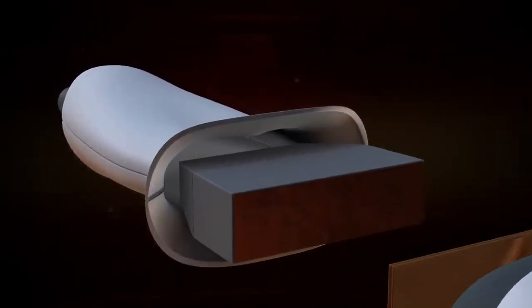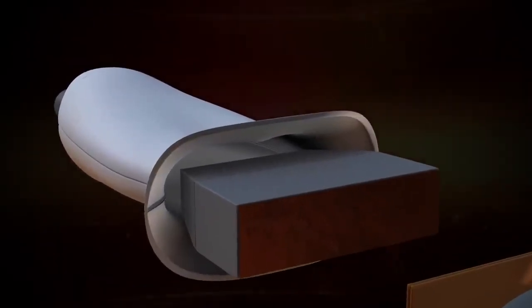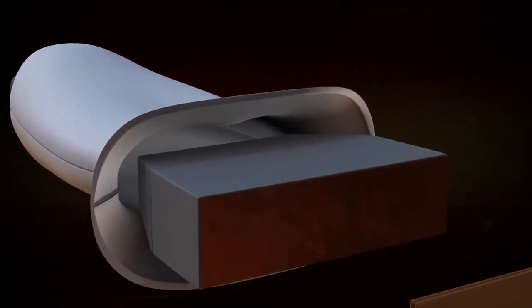The heart of most ultrasound systems is a device called a transducer, which uses an array of piezoelectric crystals. A piezoelectric crystal vibrates when an electric signal is applied, producing high frequency sound pressure waves, which we call ultrasound.